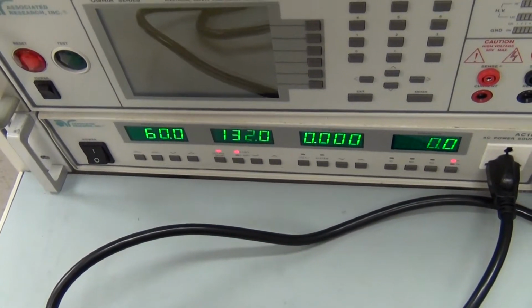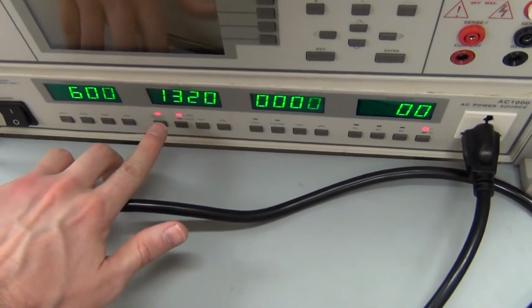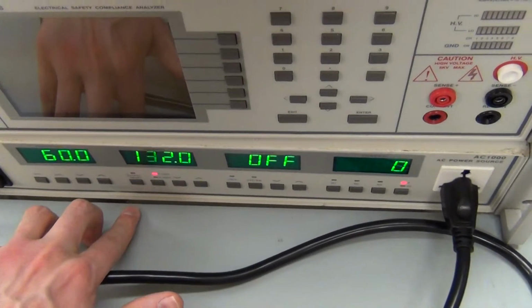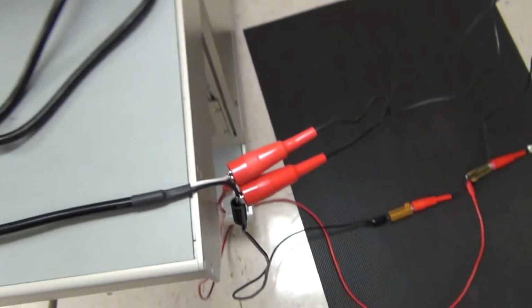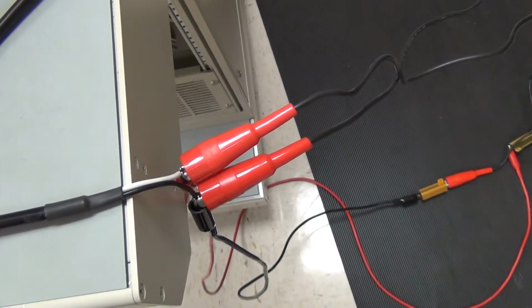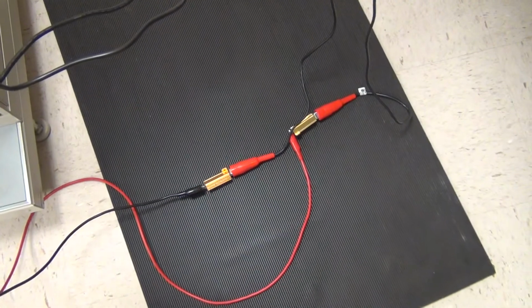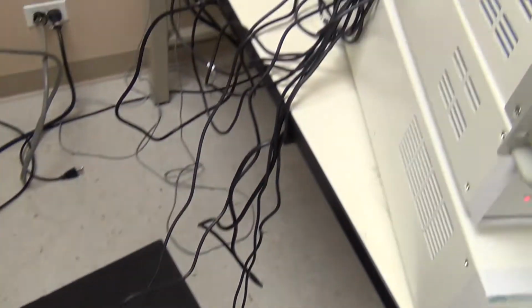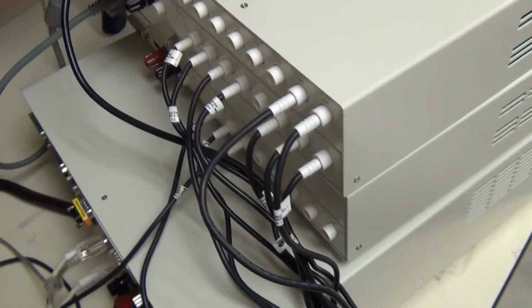Additionally, I am using a linear 1 kVA power source to simulate my T2 or my transformer 2 for my mains on applied part testing. So what I have here is 132 volts going through these lines, and you'll have to forgive me, I don't have professional fixturing here, but what I have is line and neutral from the source going through a series of resistors up to the various scanner channels. Now you'll notice I have 2 sets of wires coming out from the source. I've paralleled them, and I'll show you why.